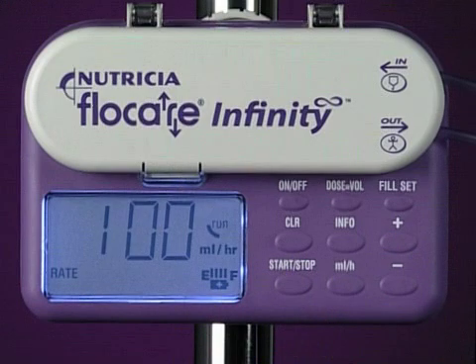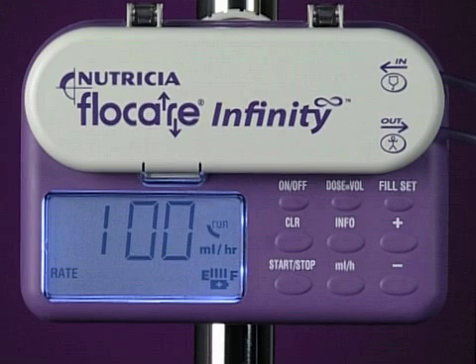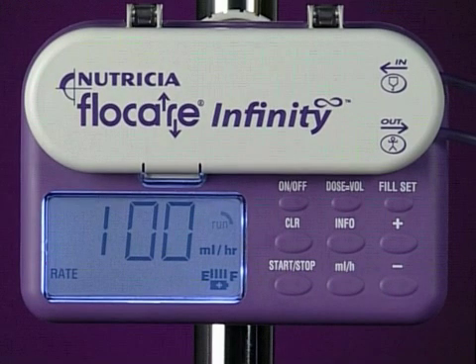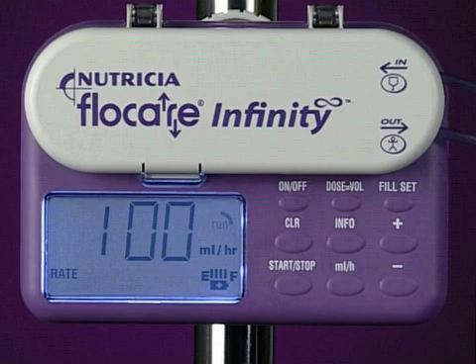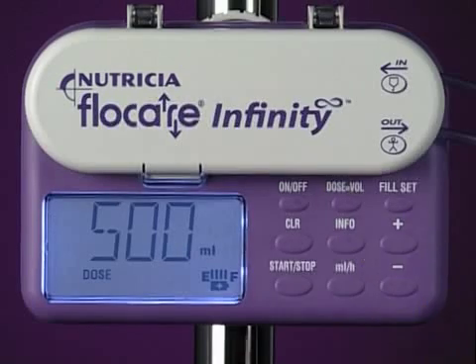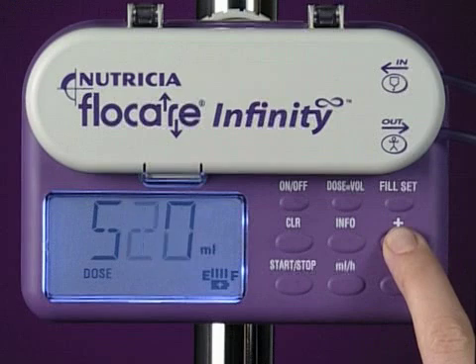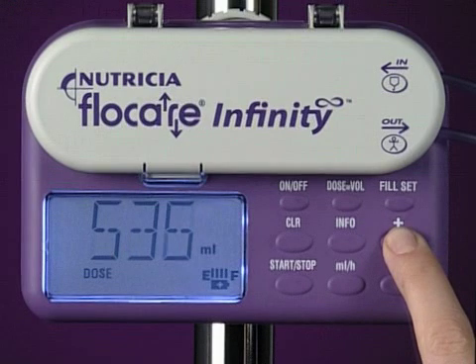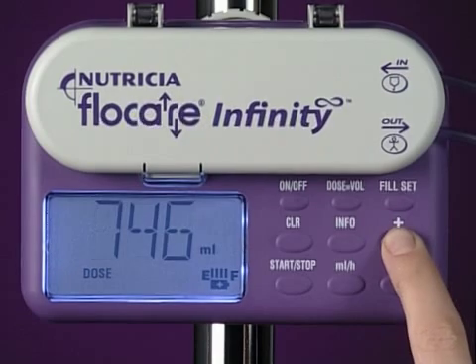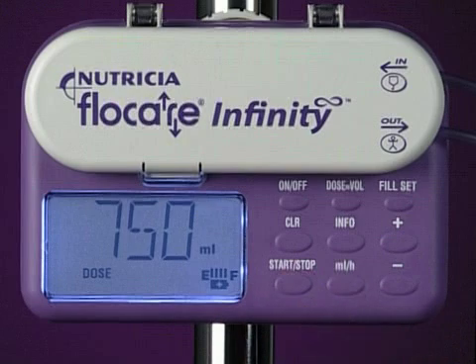You can change the rate or the dose at any stage during feeding simply by pressing the start stop key. This pauses the pump. You can then press the relevant key, for example, dose equals volume. Then using the plus and minus arrow, change the dose. Pressing start stop will resume feeding.